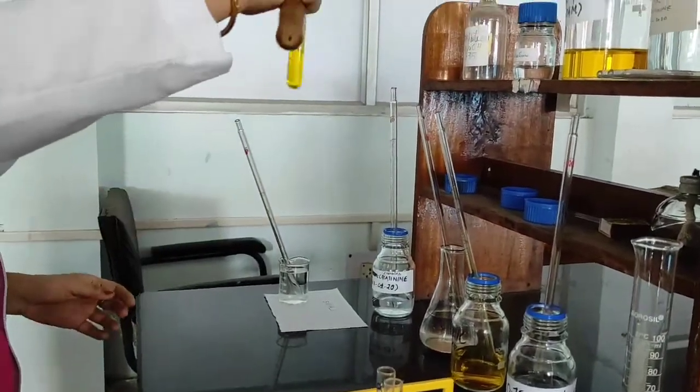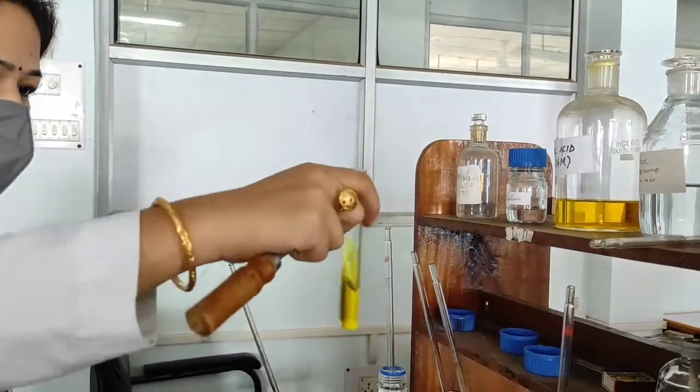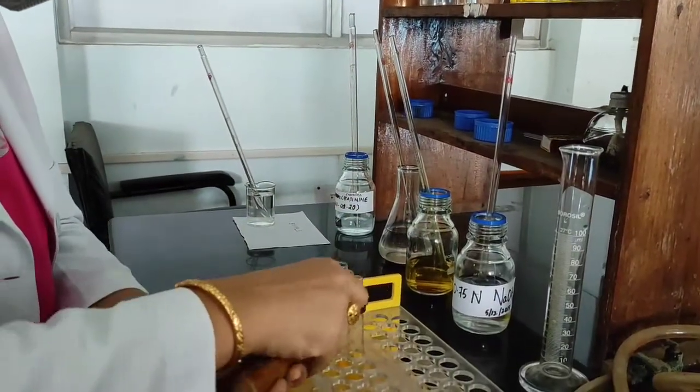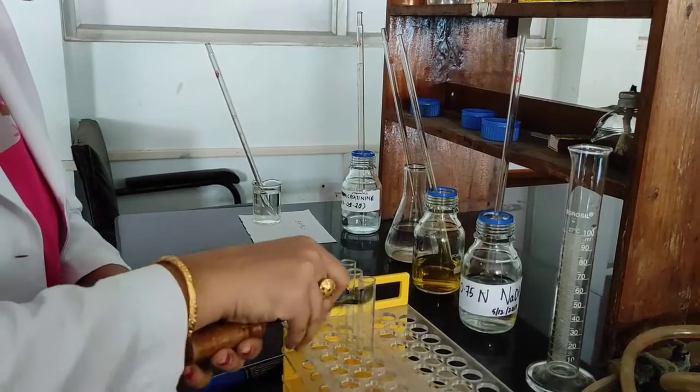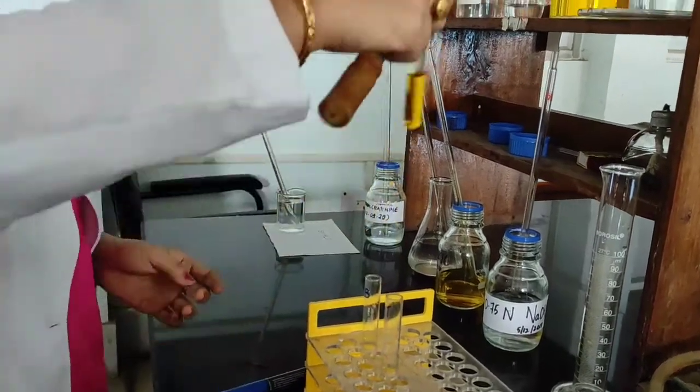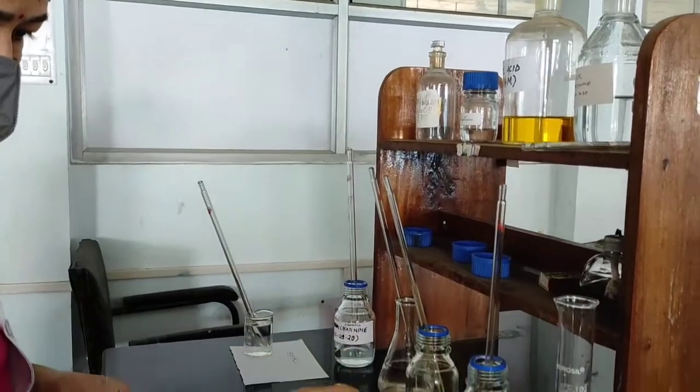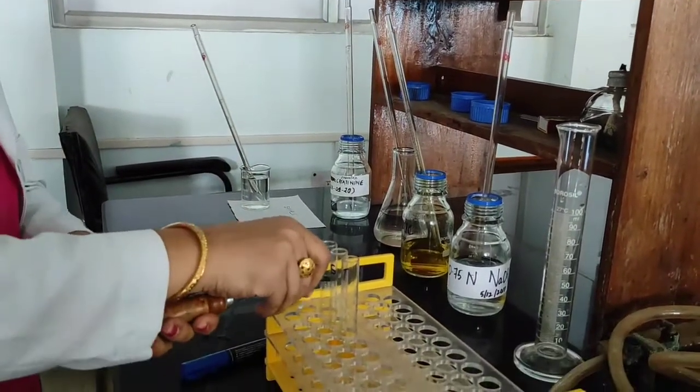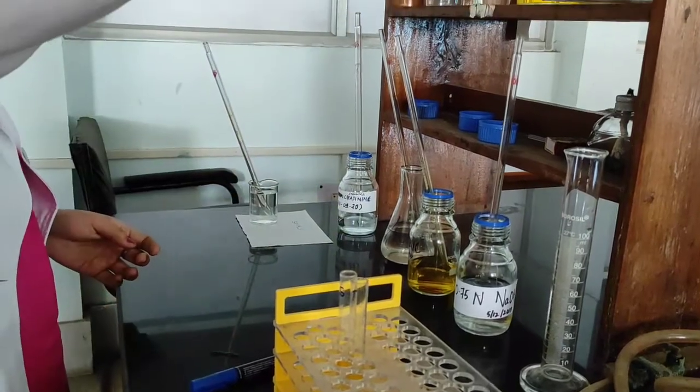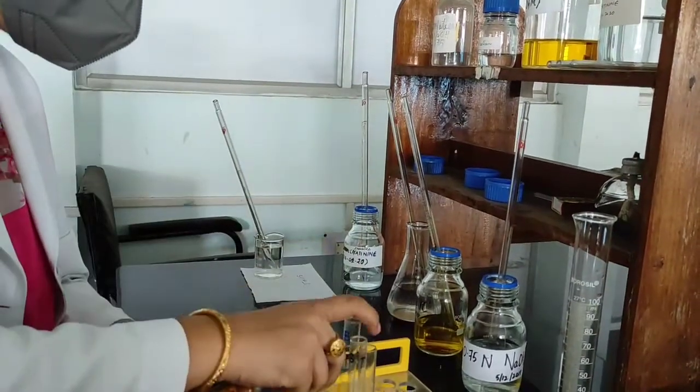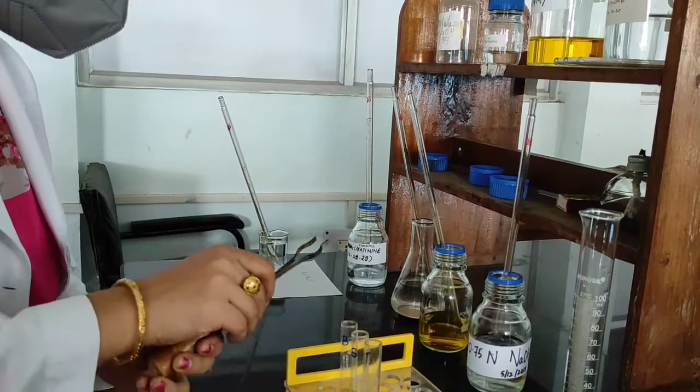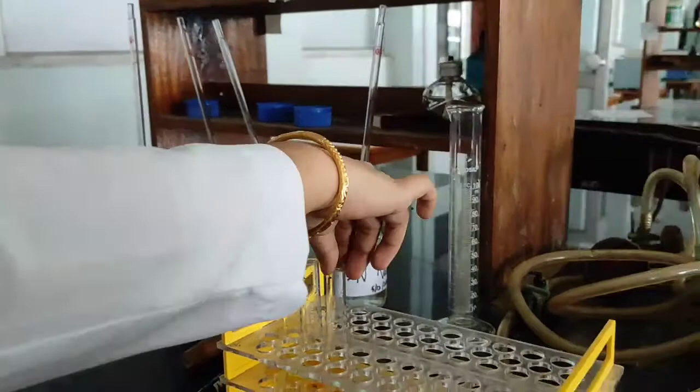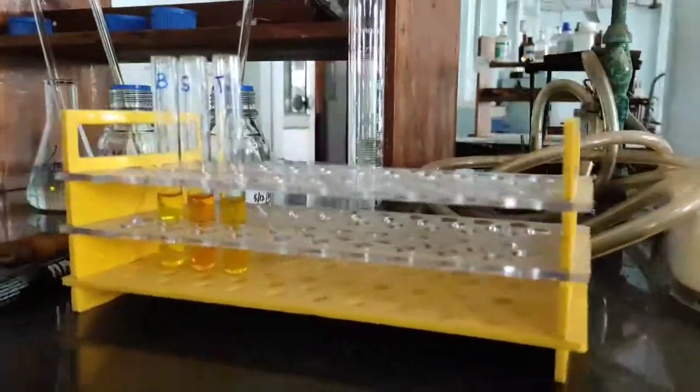So, now the test tubes, mix it well. After this, I'll be keeping these 3 test tubes for 10 minutes.